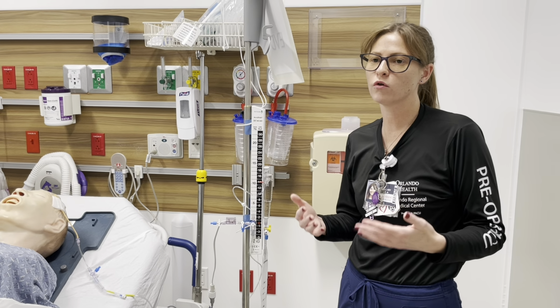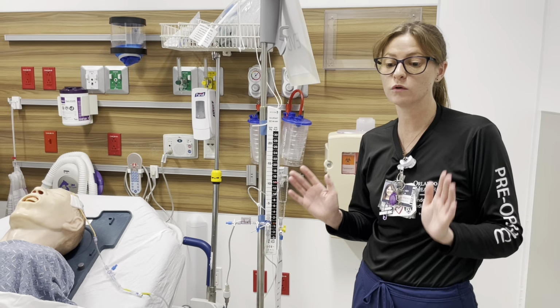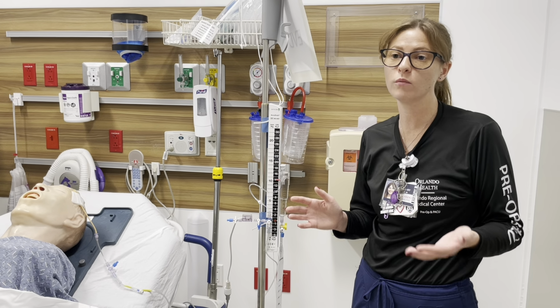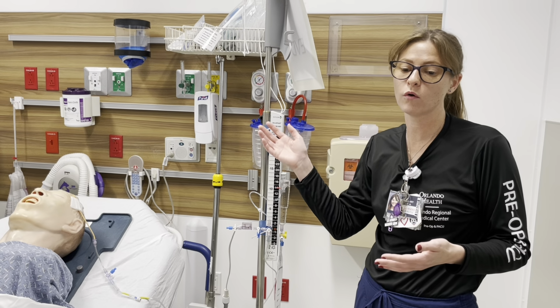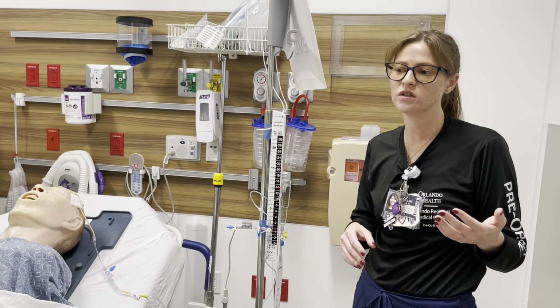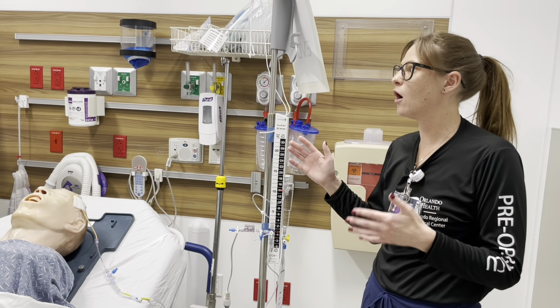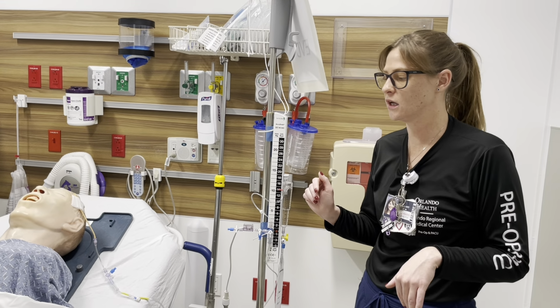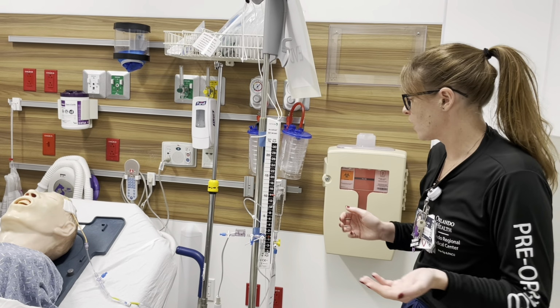So if it says 0 or negative for the first maybe hour or so, don't be too nervous. Call neurosurgery and let them know, because of course they should know. But if you don't see a waveform or you see a 0 or a negative number, that can be normal. If you see anything greater than 15, you really should be wondering, okay, why are we creeping up so high? Are my waveforms appropriate? Those kinds of things.